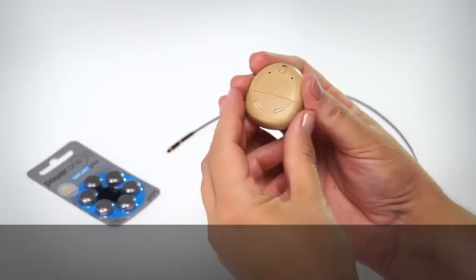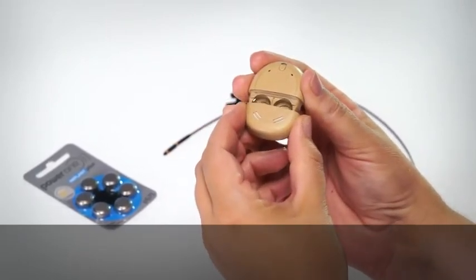Remove the battery cover. Use your fingers on the sides to pull off the cover.